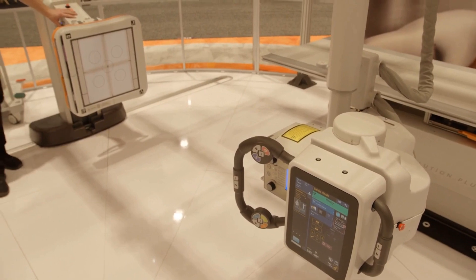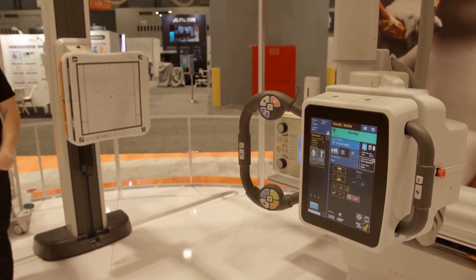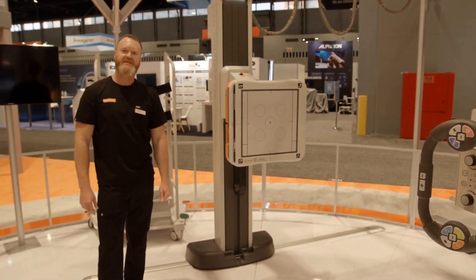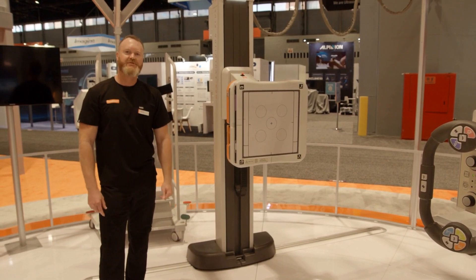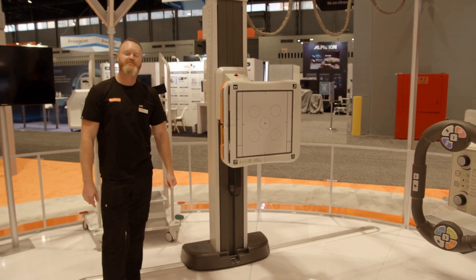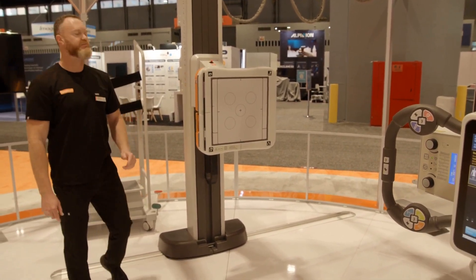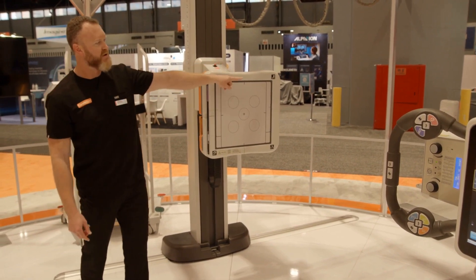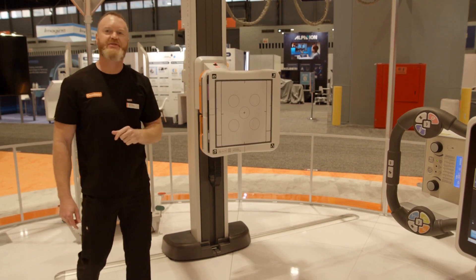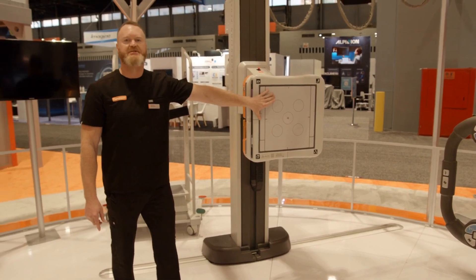Of course, being our flagship room, we have a number of advanced features that can be equipped. We have functions like auto-LLI with automatic stitching, digital tomosynthesis, and dual energy. And then we have smart room features as well — smart noise cancellation and smart room positioning, utilizing cameras both to the side of the wall stand and from the tube to automatically position based on the patient's location.